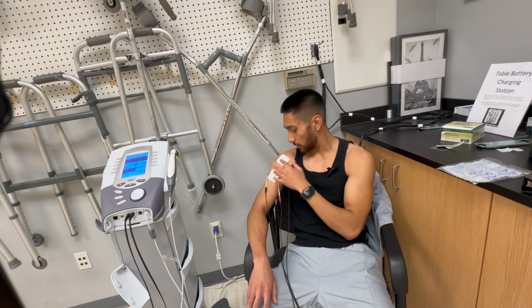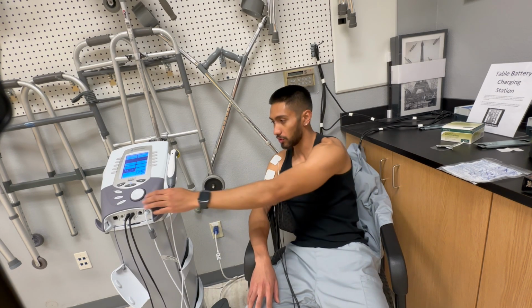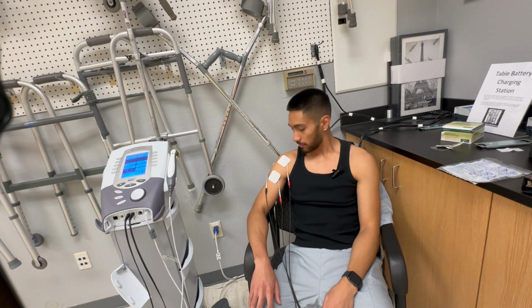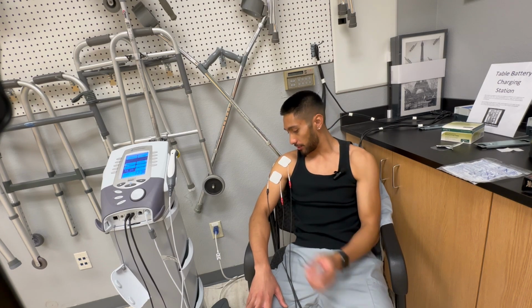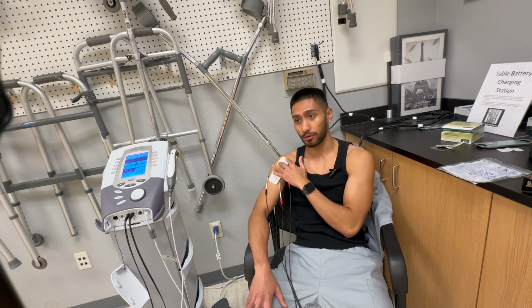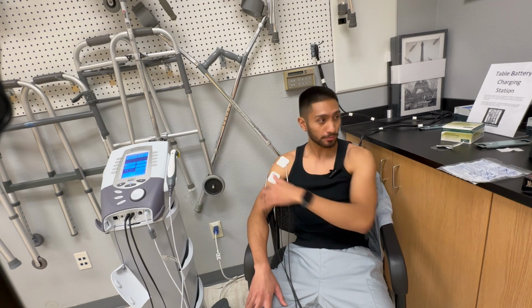I'm feeling the tingling sensation on the lower end, however on the higher end, that's when I'm getting some muscle contractions or it hurts. It is hard to find that balance, obviously, just trying the dial to go around. You can have maybe some little bits of muscle contraction, but the primary focus is we're trying to get that tingling sensation going on with the electric pads.